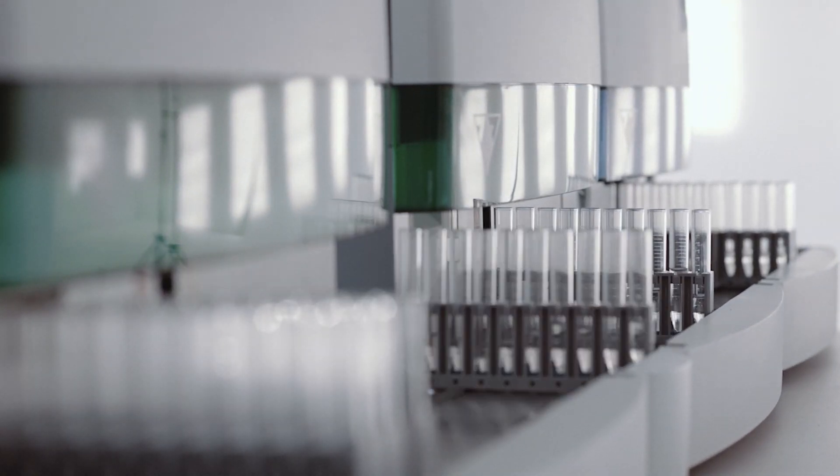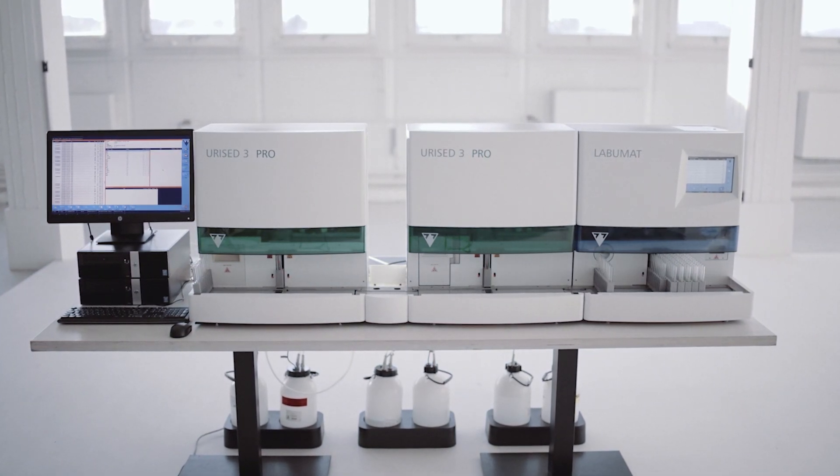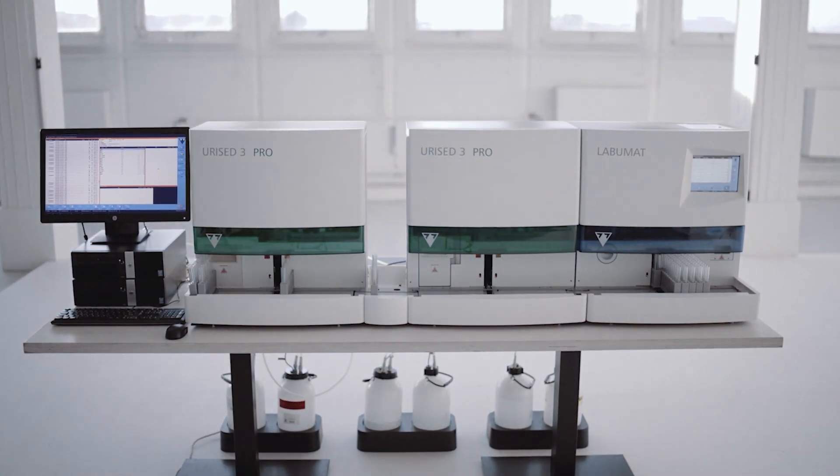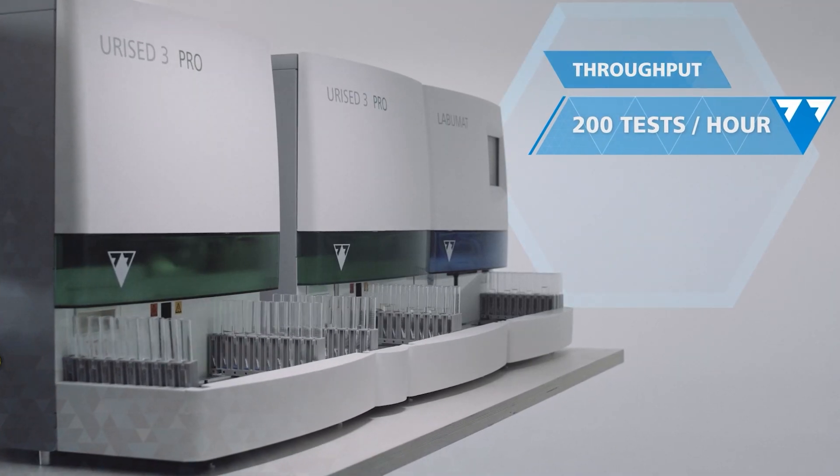The configuration creates a physical and data link connection between the chemistry analyzer and the two sediment analyzers, providing a market-leading throughput of up to 200 tests per hour.